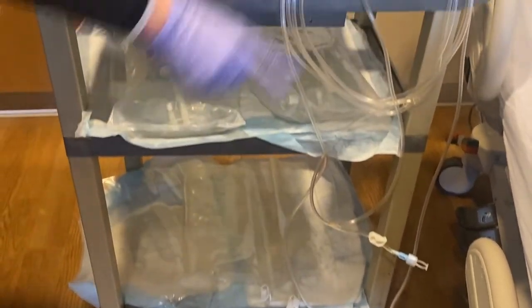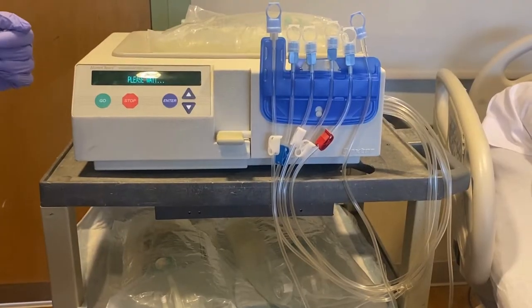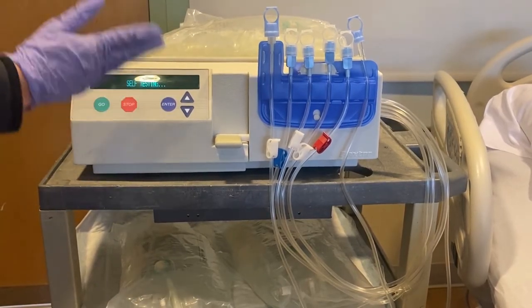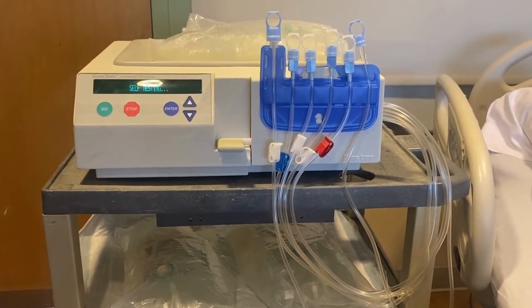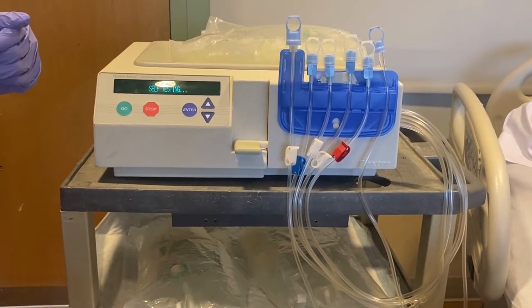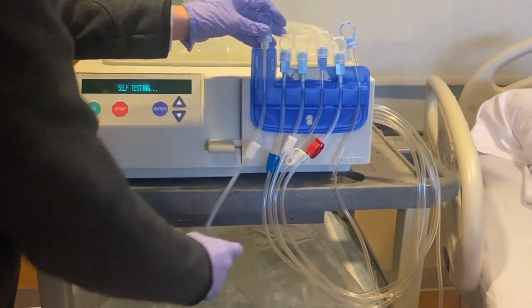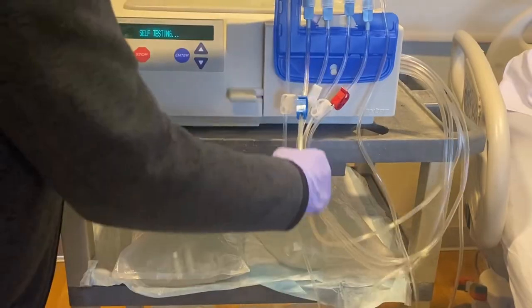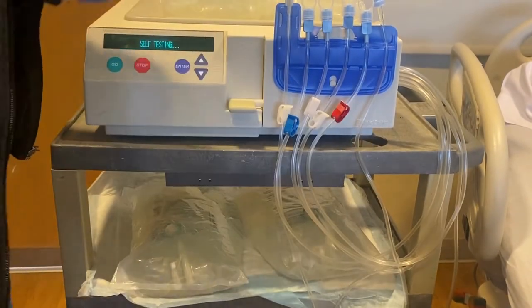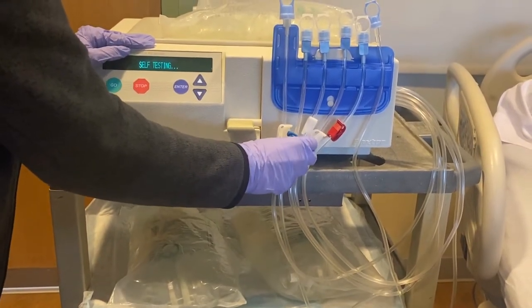Drain bags are ready. The set is loaded — click go again and it will perform a bit of self-testing. While that runs, ensure that all lines are not tangled. Any lines not used for therapy — for example, if there's no last fill — can remain clamped off. There's never a need to open that line.